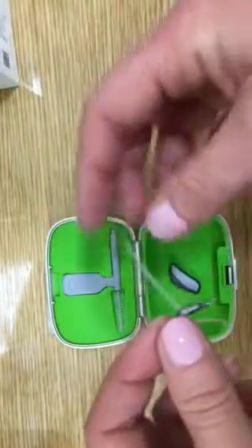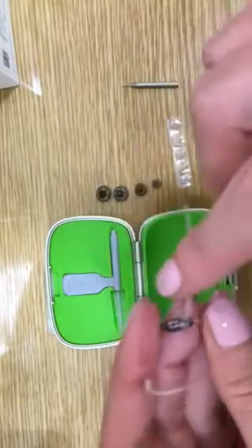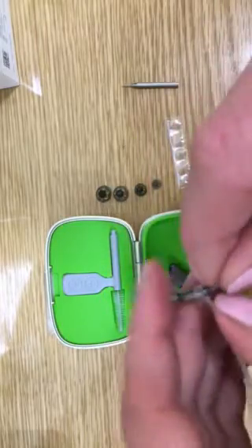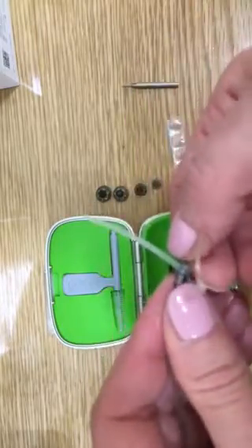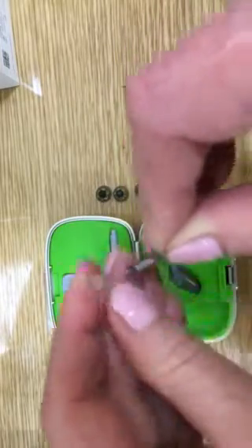This is a little retention tail and is used to keep the receiver in the ear on some ears. It's not required for all ear shapes, so we'll just take this off for now.